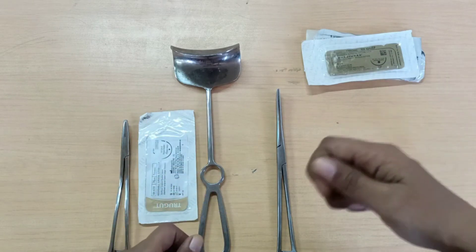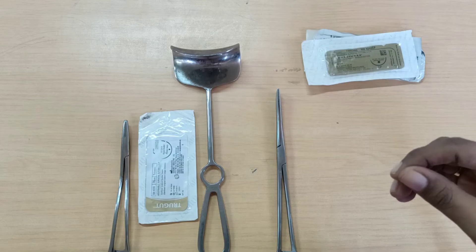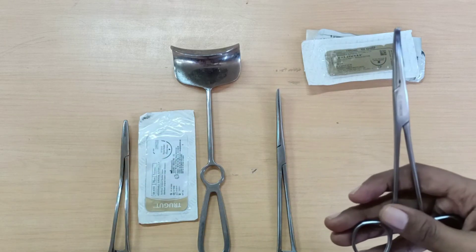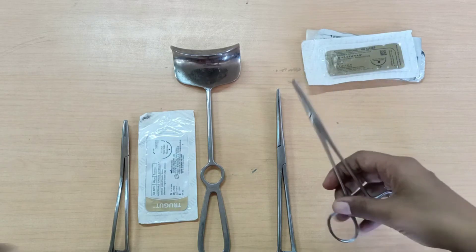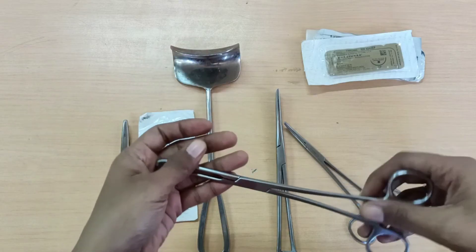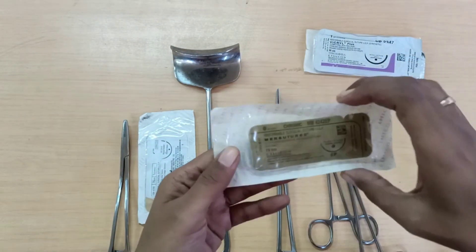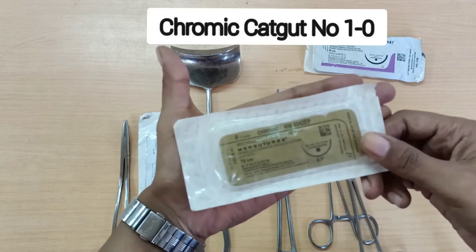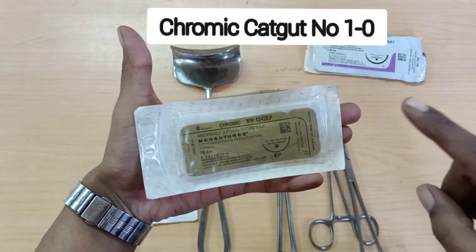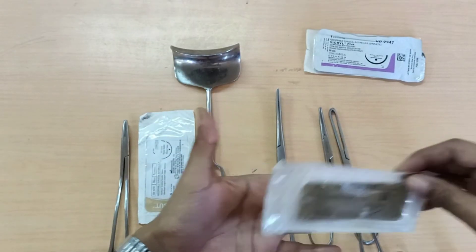Once complete haemostasis over the uterus has been achieved, you are going to suture the peritoneum. For holding the peritoneum you will require either artery forceps or Alice tissue holding forceps. After holding the edges, you suture the peritoneum using chromic catgut number 1-0 or chromic catgut number 0 suture, in a continuous running fashion.